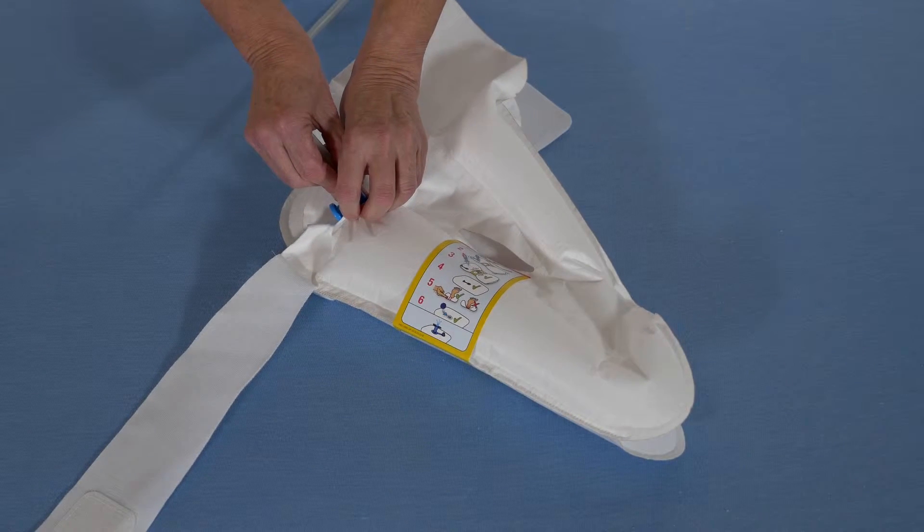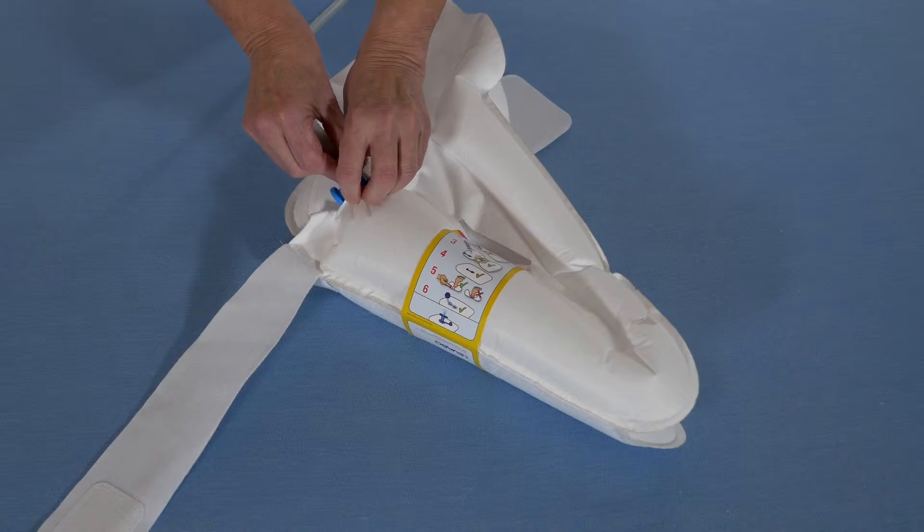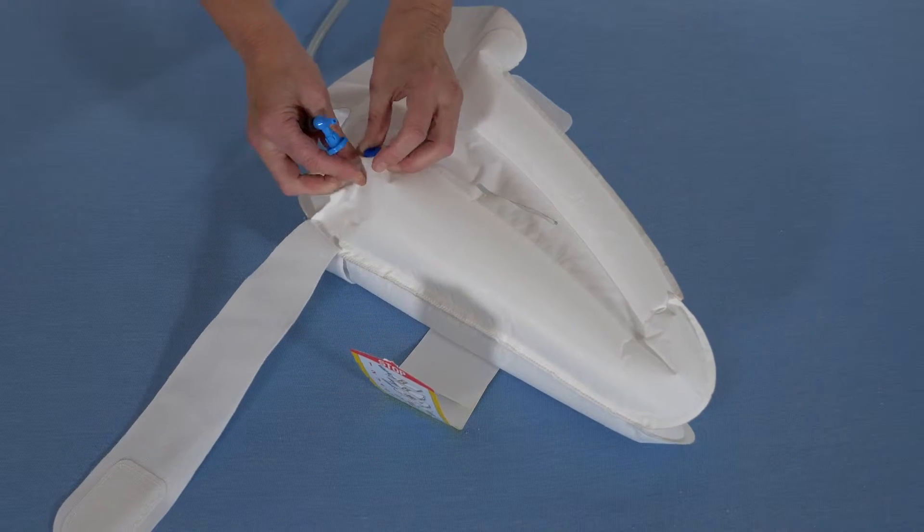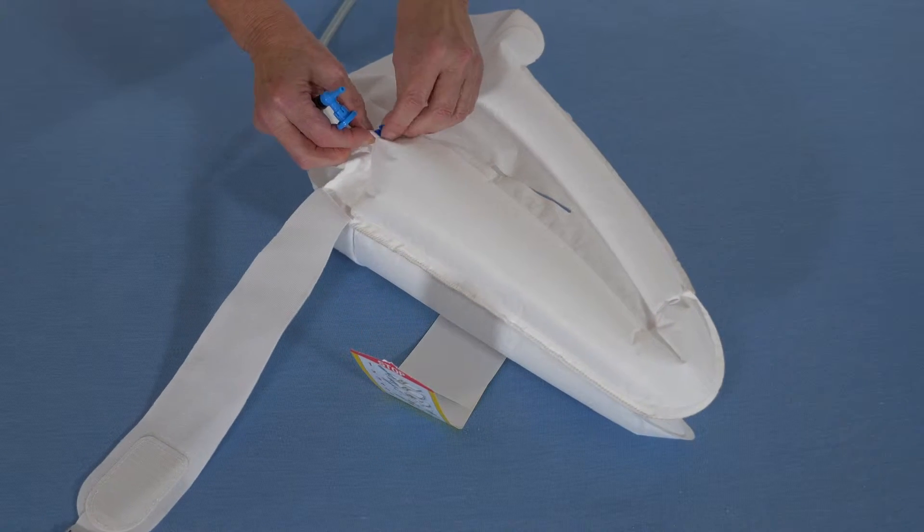Inflate the cushion until the enveloping paper strap stopper jumps and remove the pump. Heel Up is now ready for use.